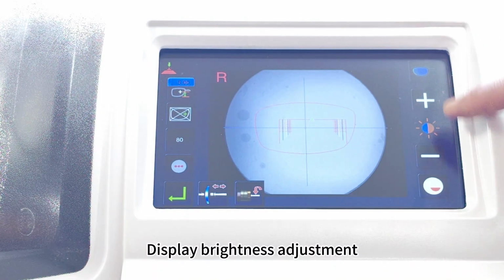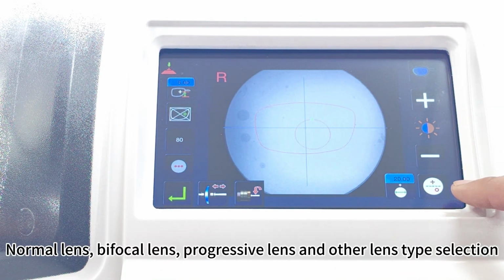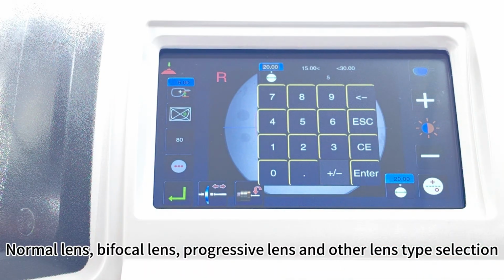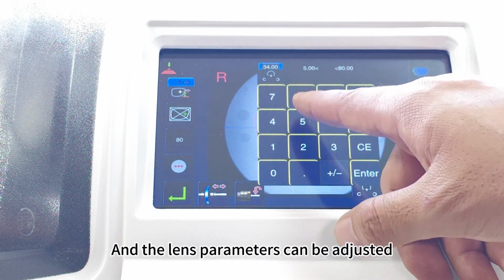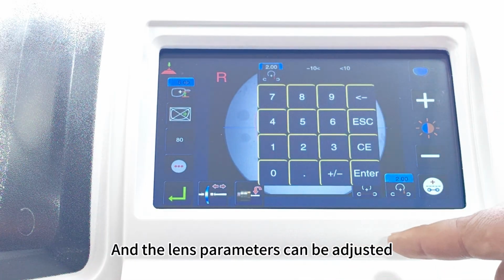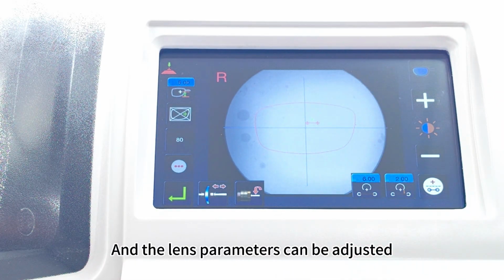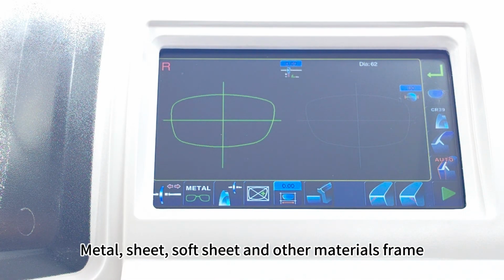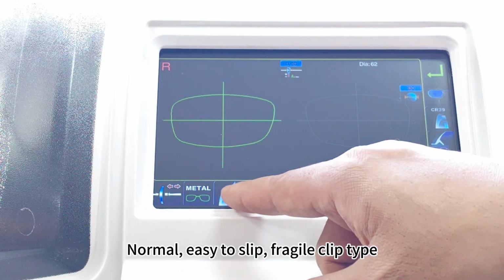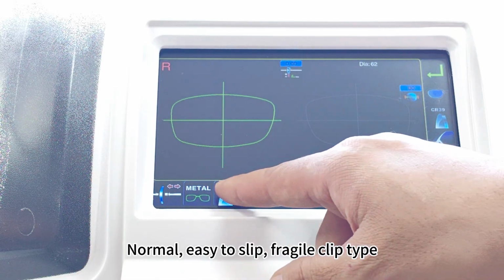Display brightness adjustment. Normal lens, bifocal lens, progressive lens, and other lens type selection. And the lens parameters can be adjusted. Metal, sheet, soft sheet, and other materials frame. Normal, easy to slip, fragile clip type.